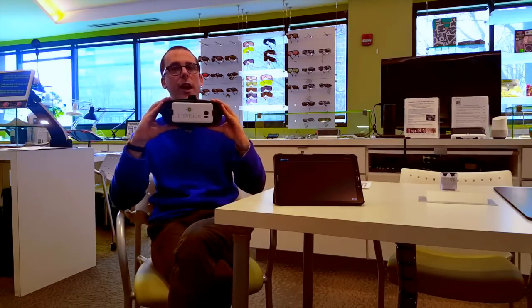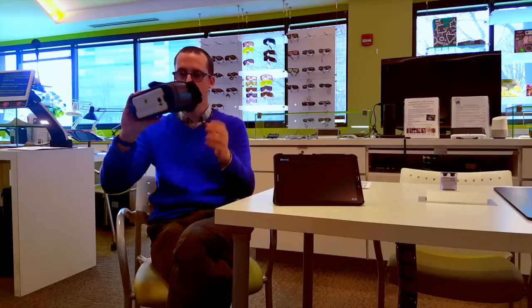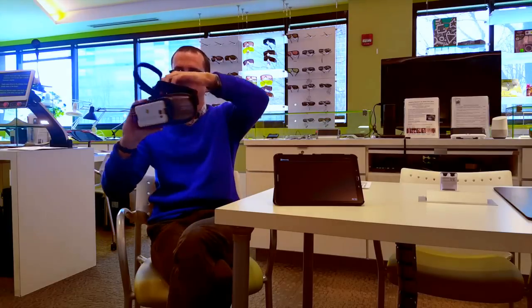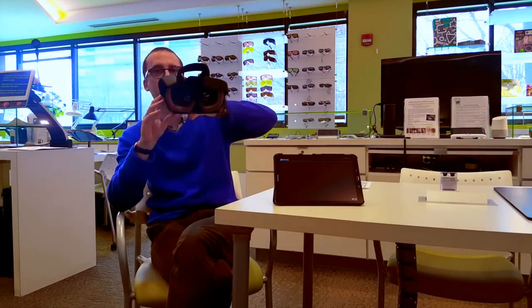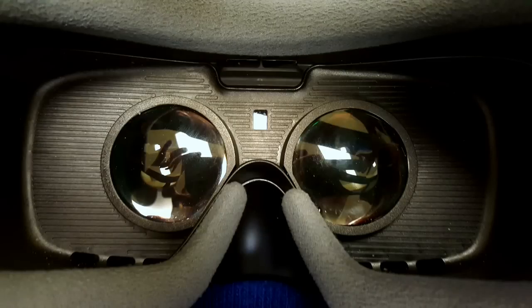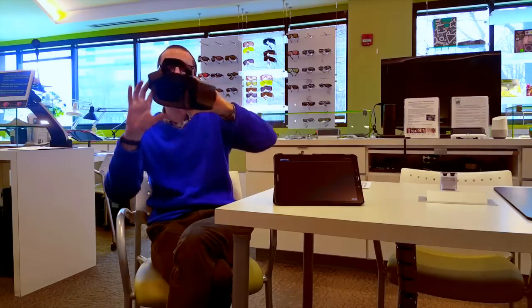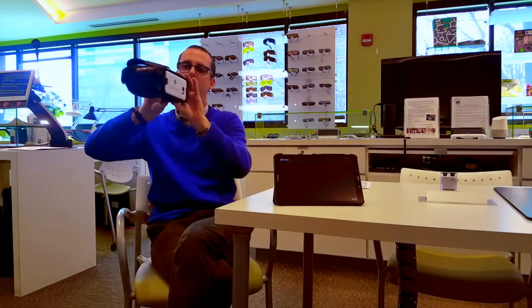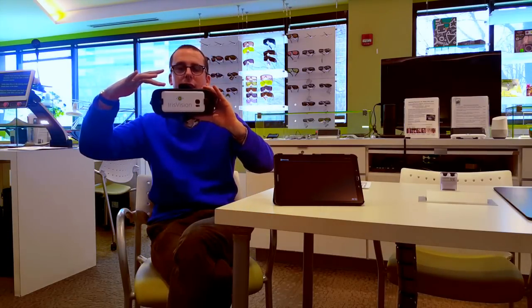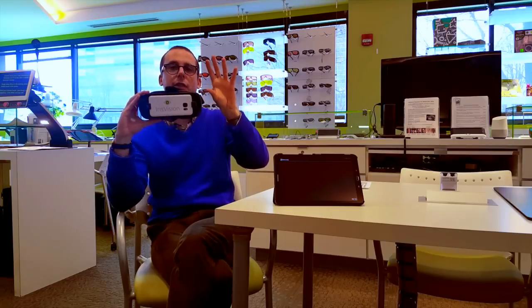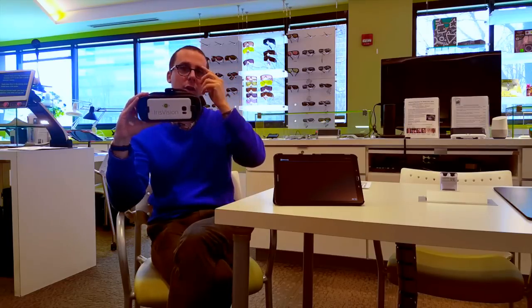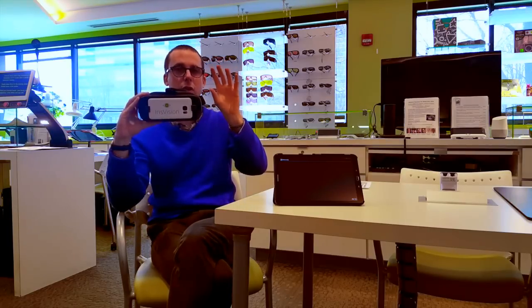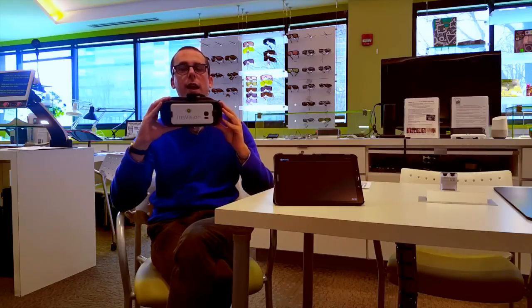One of the great things about this device compared to some of the other headsets on the market is these lenses, and hopefully you can make those out which you look into when you put the headset on. Now these lenses are magnifying lenses, and so when you're looking at the screen of the device here, it magnifies that screen and in effect makes the screen that you're looking at appear very large, much larger than any of the other headsets that we've tried on the market. And that makes it very comfortable to use this device.